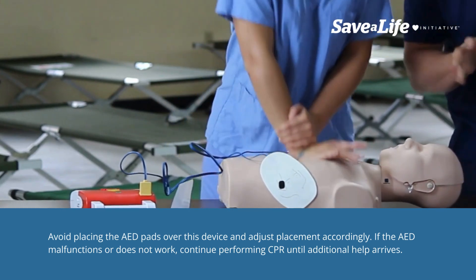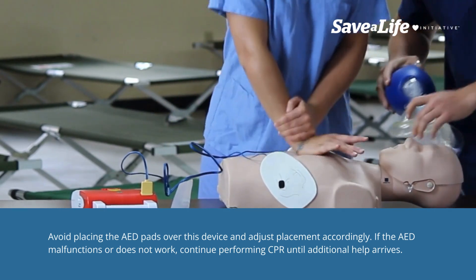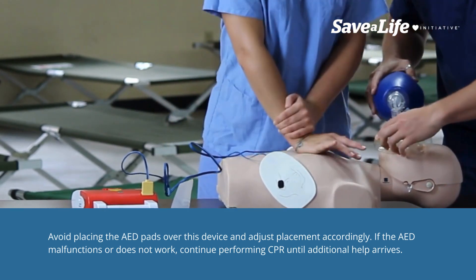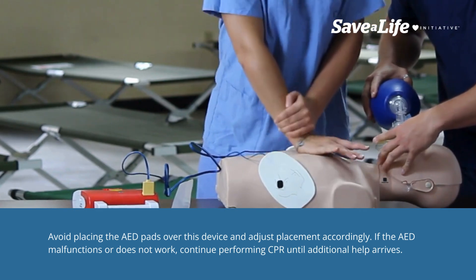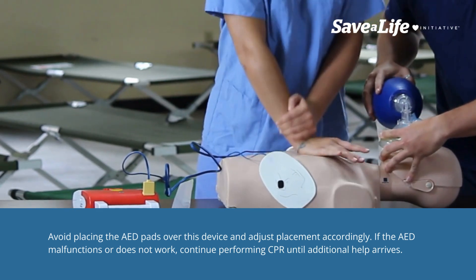If the AED malfunctions or does not work, continue performing CPR until additional help arrives.